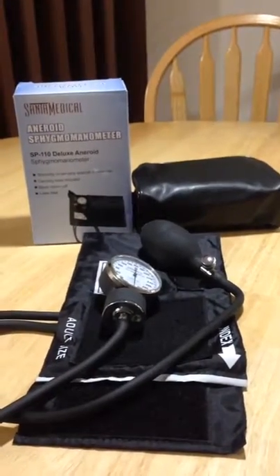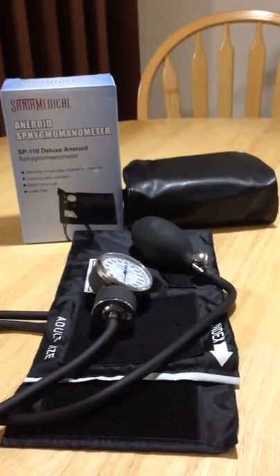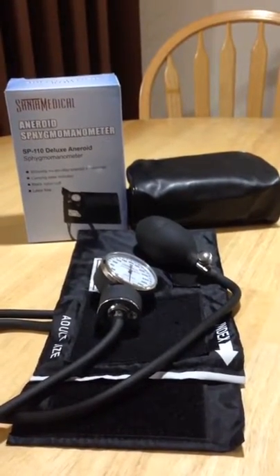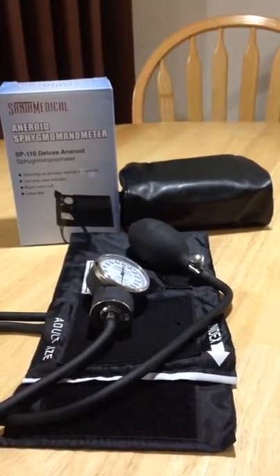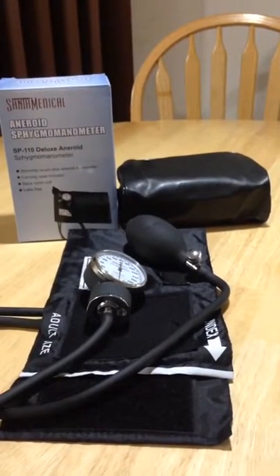This is a highly delicate, sophisticated piece of medical equipment — a medical tool. You don't want to bump it, knock it, or jar it. But it's a great one. We've been using it every day trying it out and I love it. My wife is actually going to take this one and use it at her work, and hopefully this was helpful.